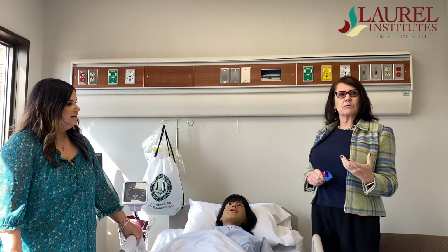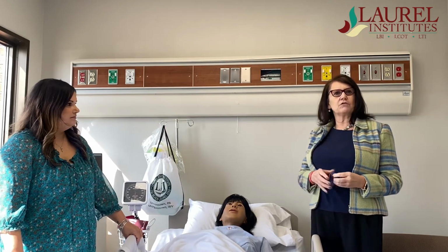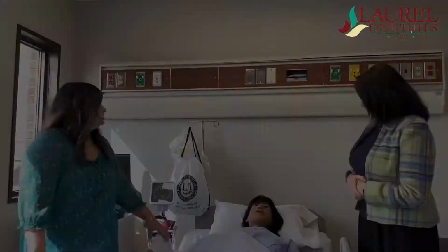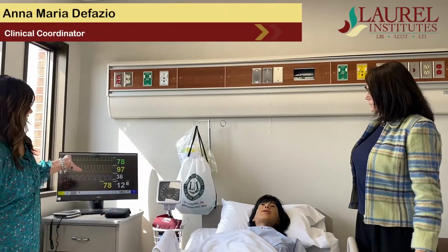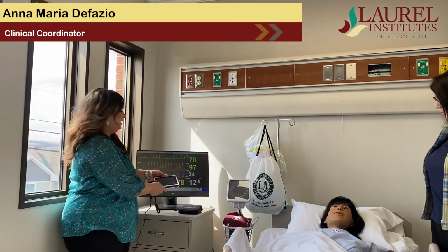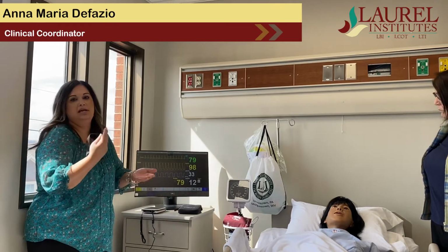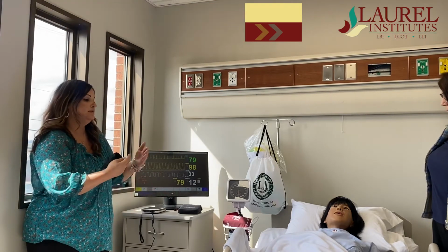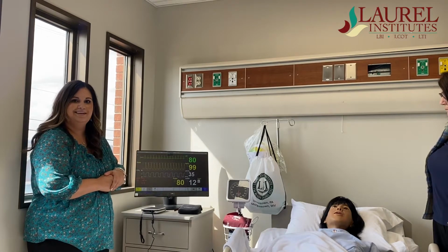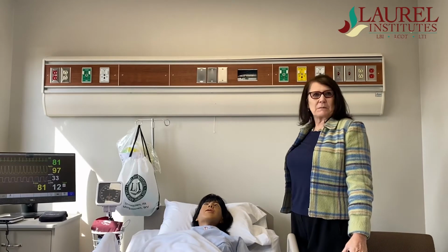She can talk through a microphone that we can give her voice, or we can use programmed voice over that she speaks to them. So this is to simulate actual vital signs, which we can control by this little sim pad here. We can make her have an episode where she's coding, she's in atrial fibrillation, and then the students will be here to treat her as if it was a real hospital setting. So if she even flatlined, we can do CPR on her.